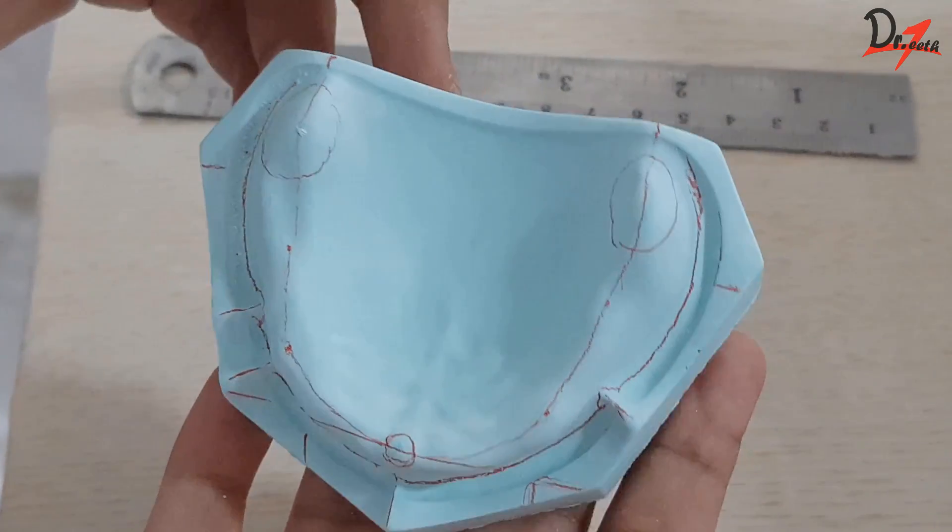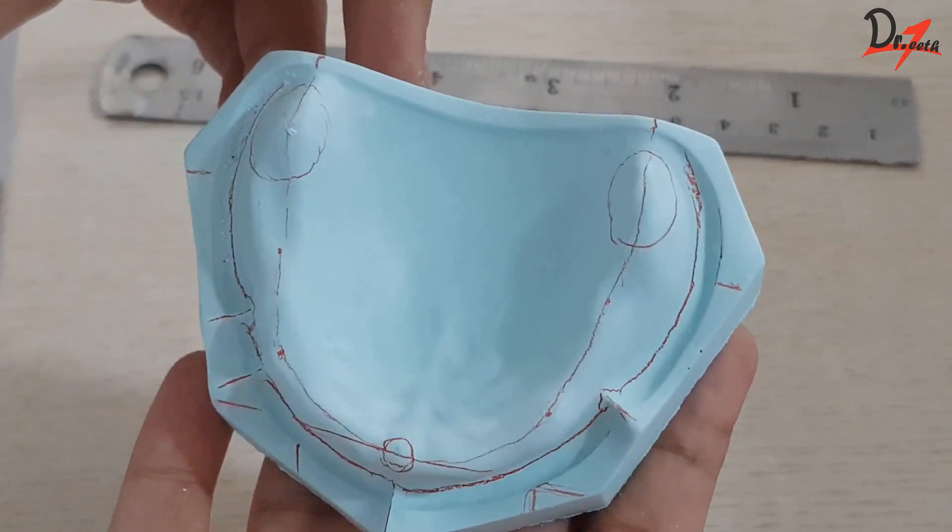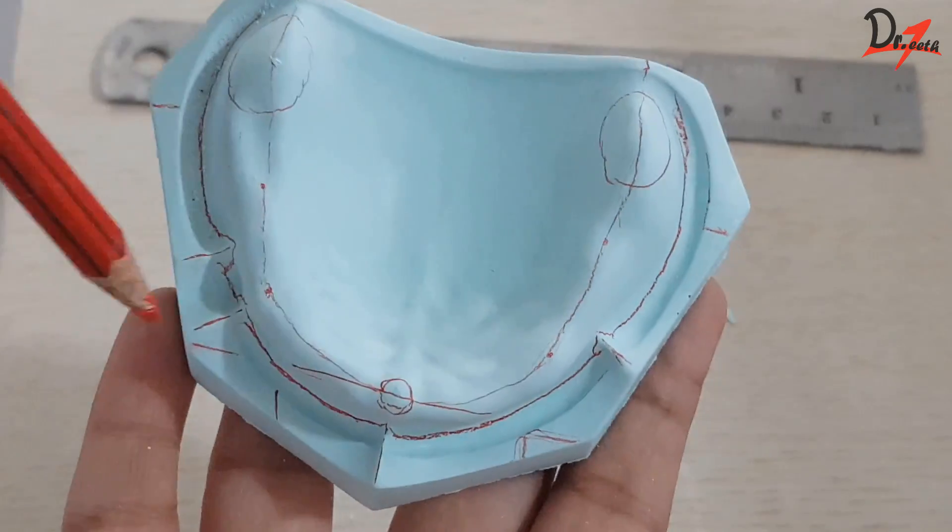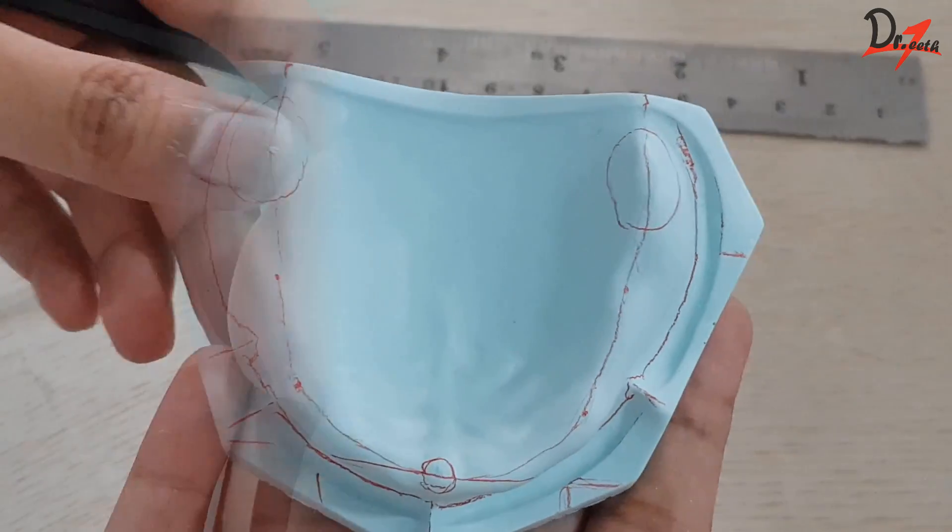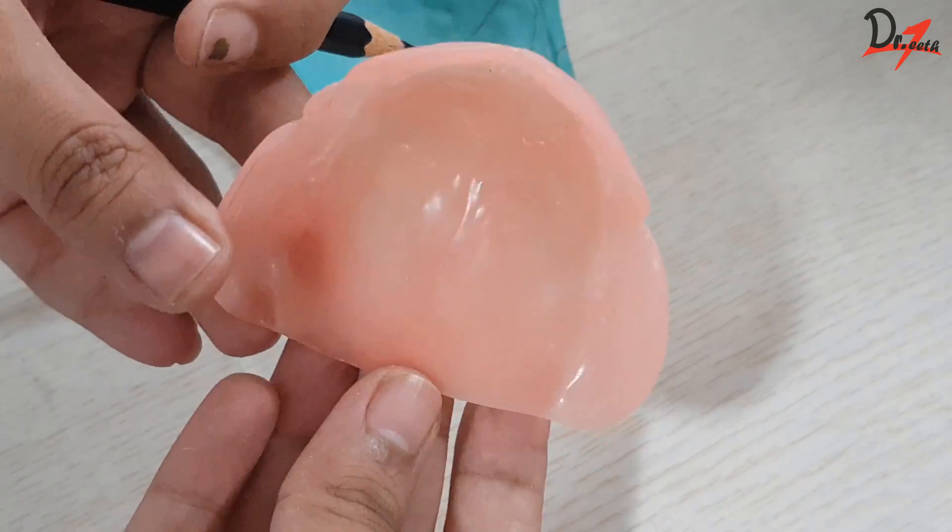Hello everyone, Asalaamu Alaikum. In this video, we are going to see the lines we need to know and we need to draw on the cast before we begin any of our work.